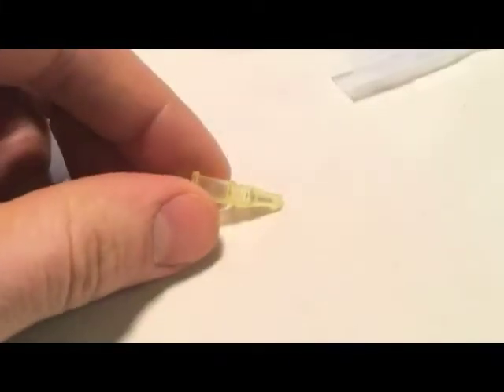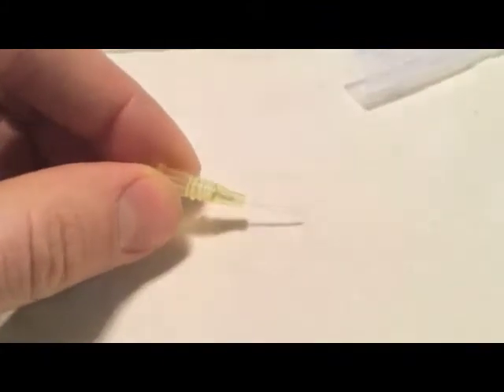As you can see as we get closer here, you can pull the catheter out and there is just that small straw. That's all that's left.